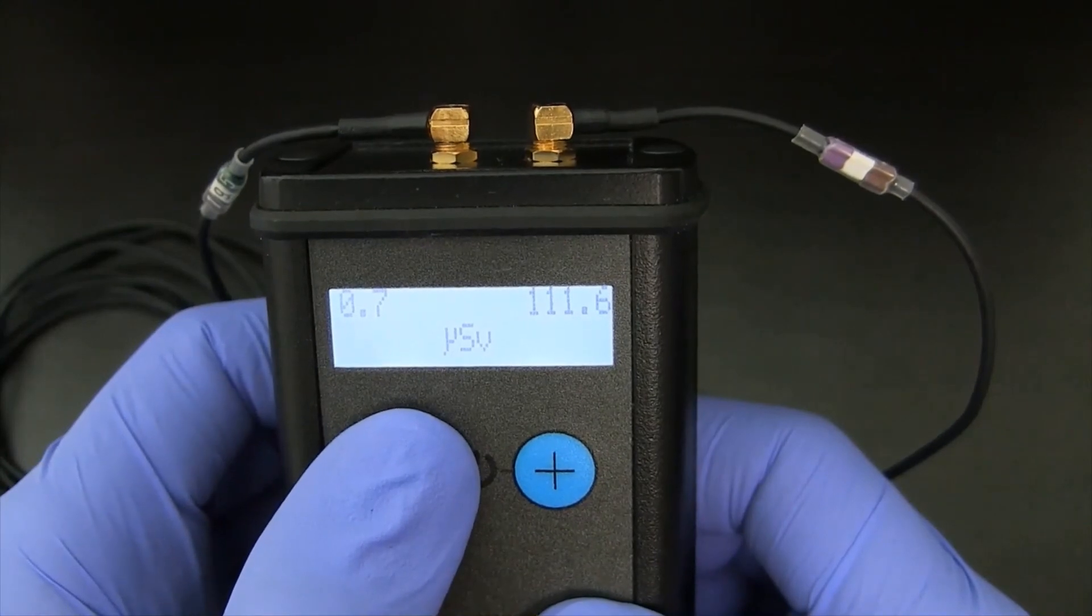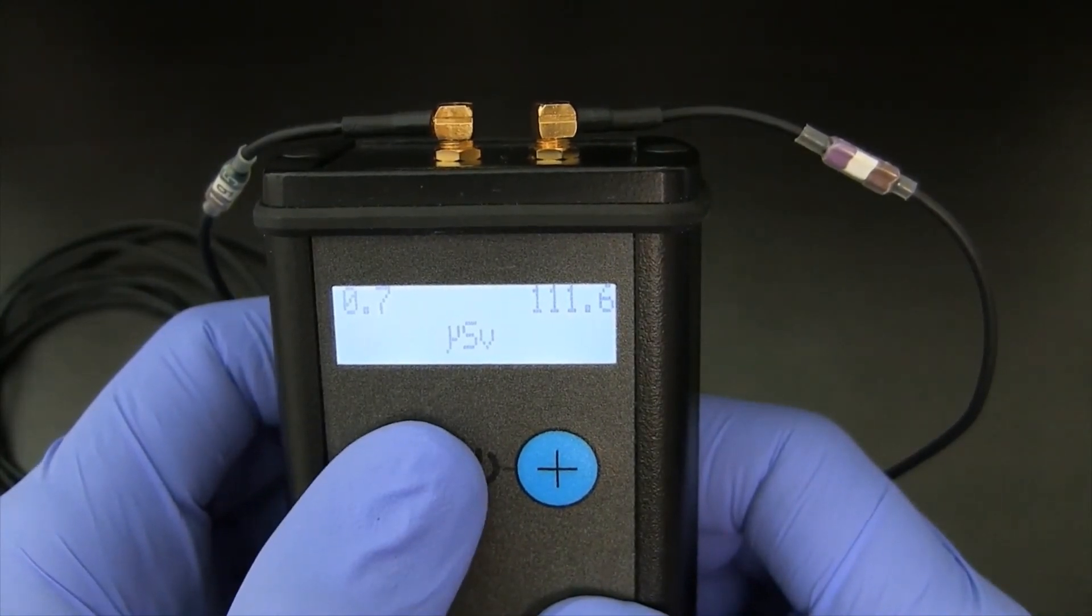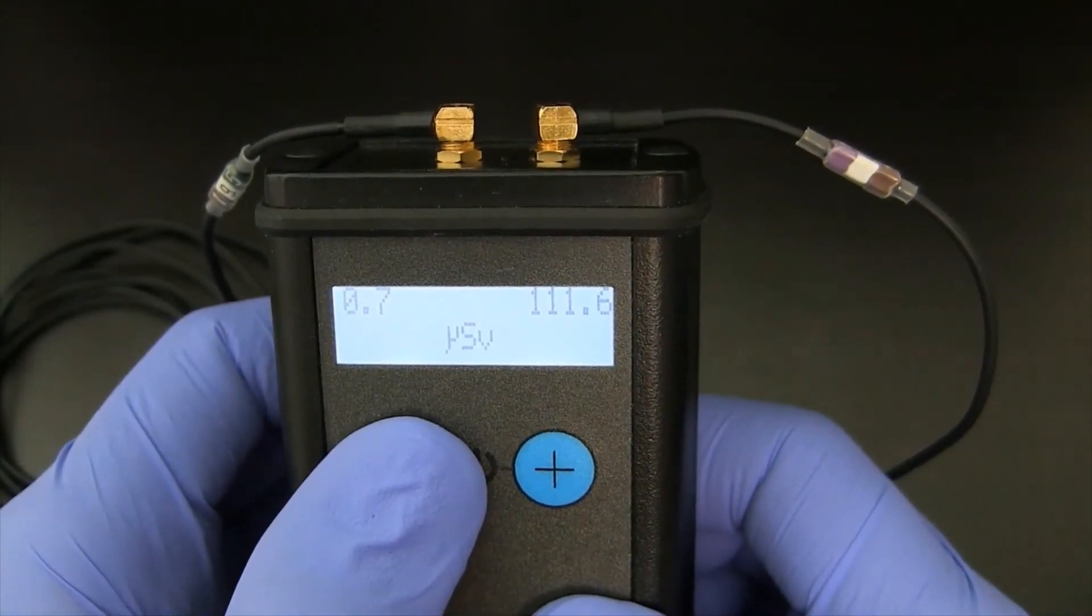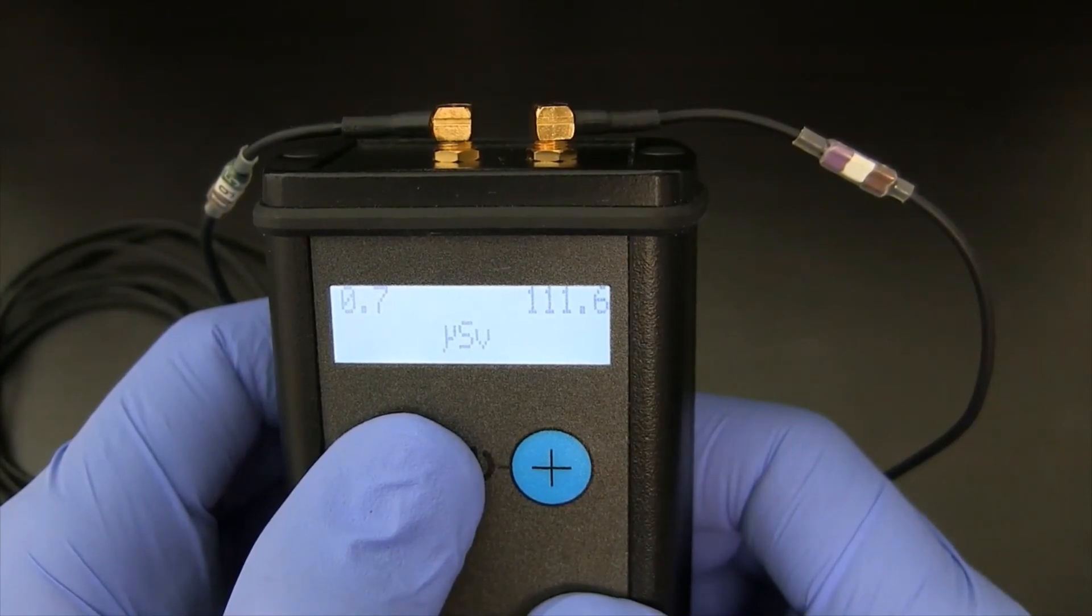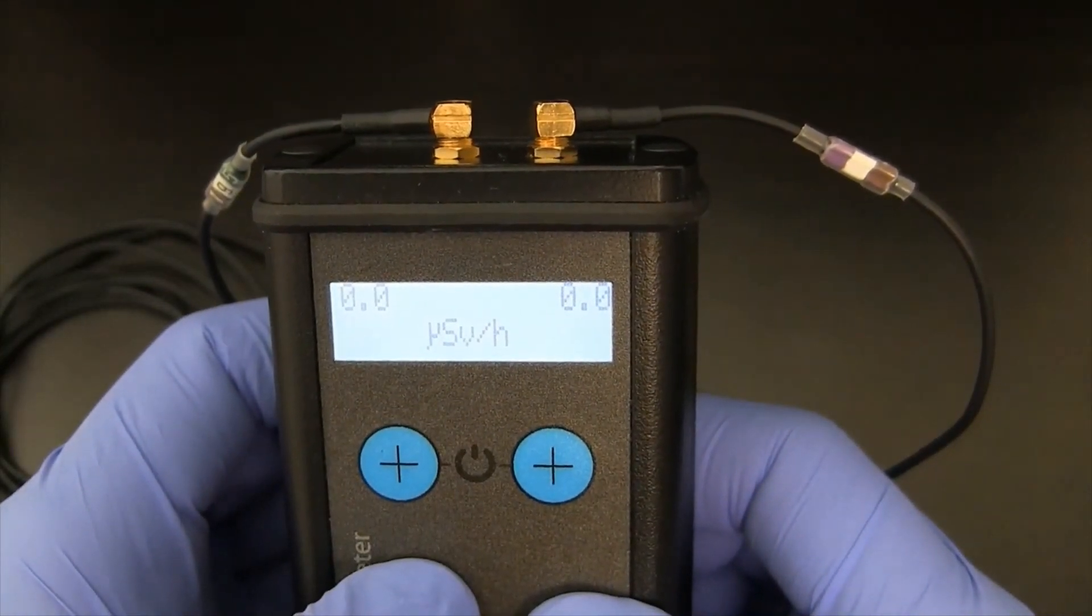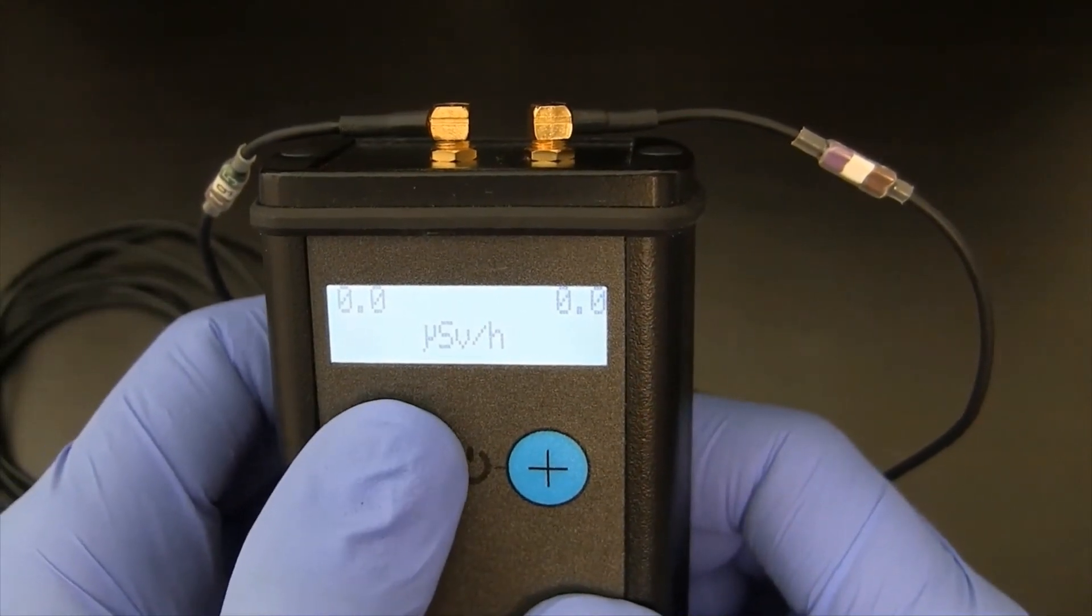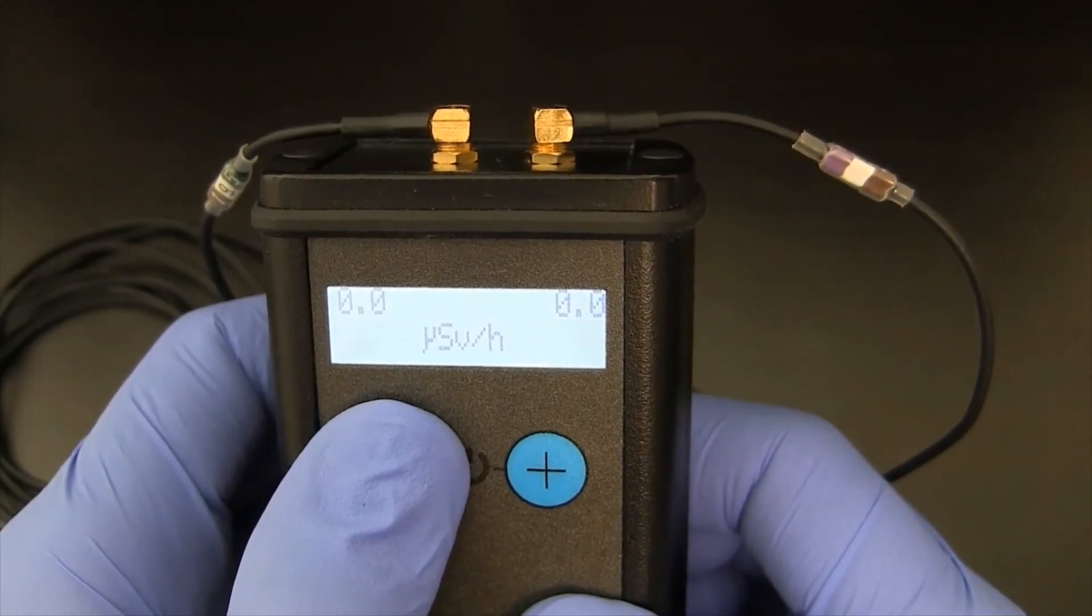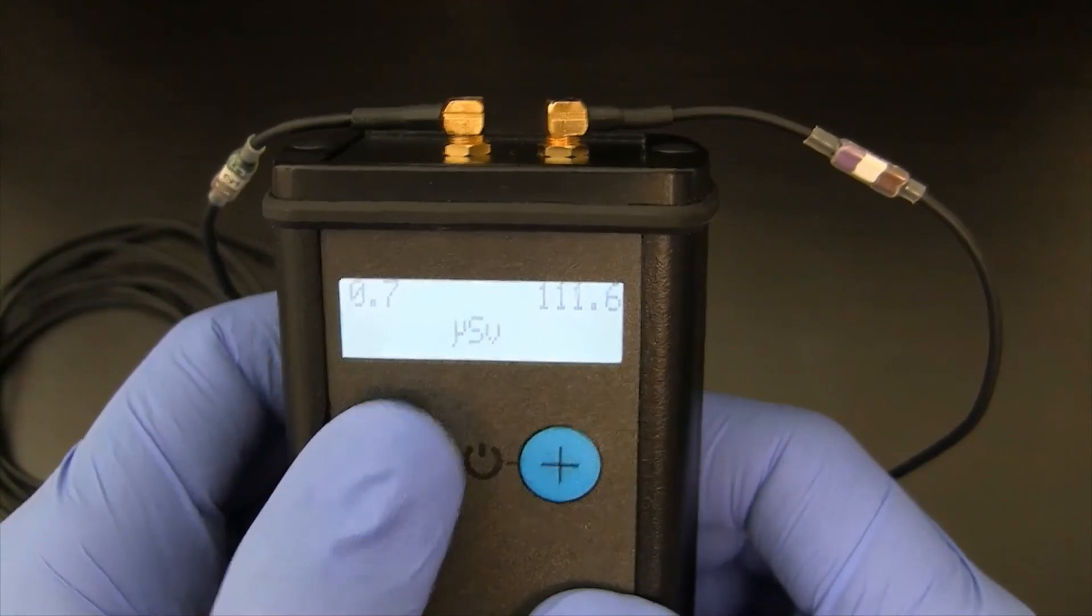I can change from dose into dose rate. If I want to go back to dose, I just select the button again, hold it down, and it goes back to dose.